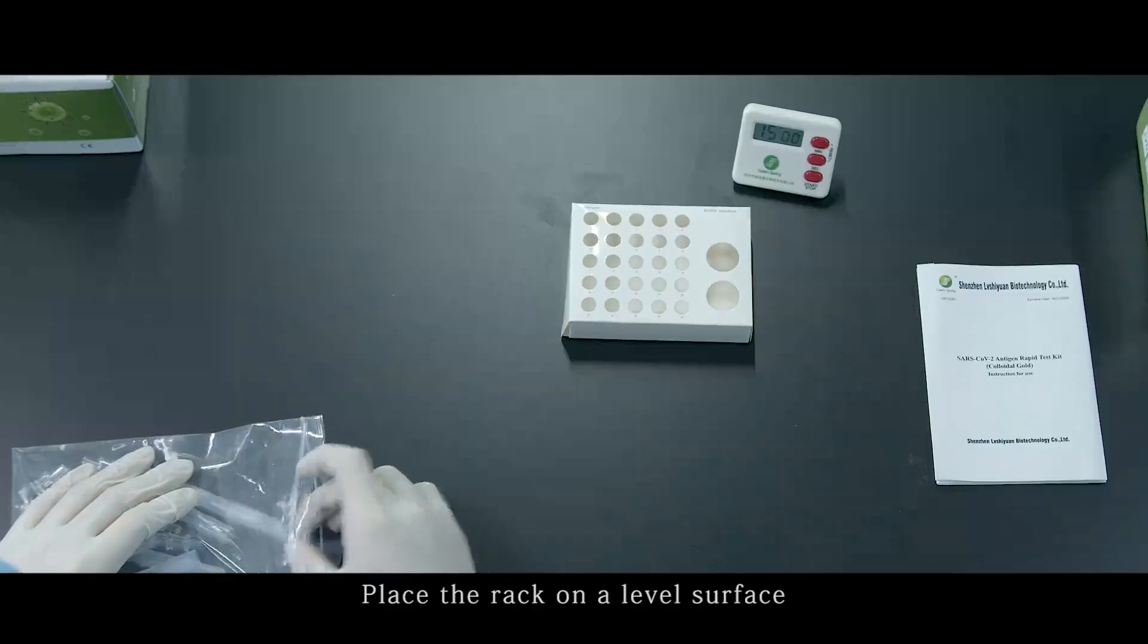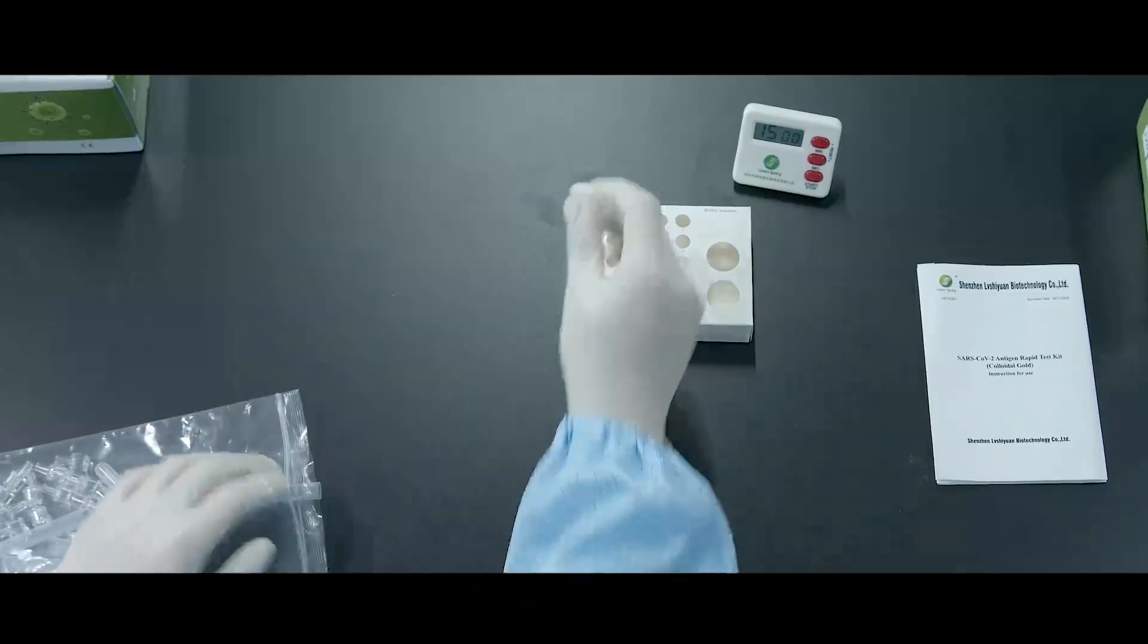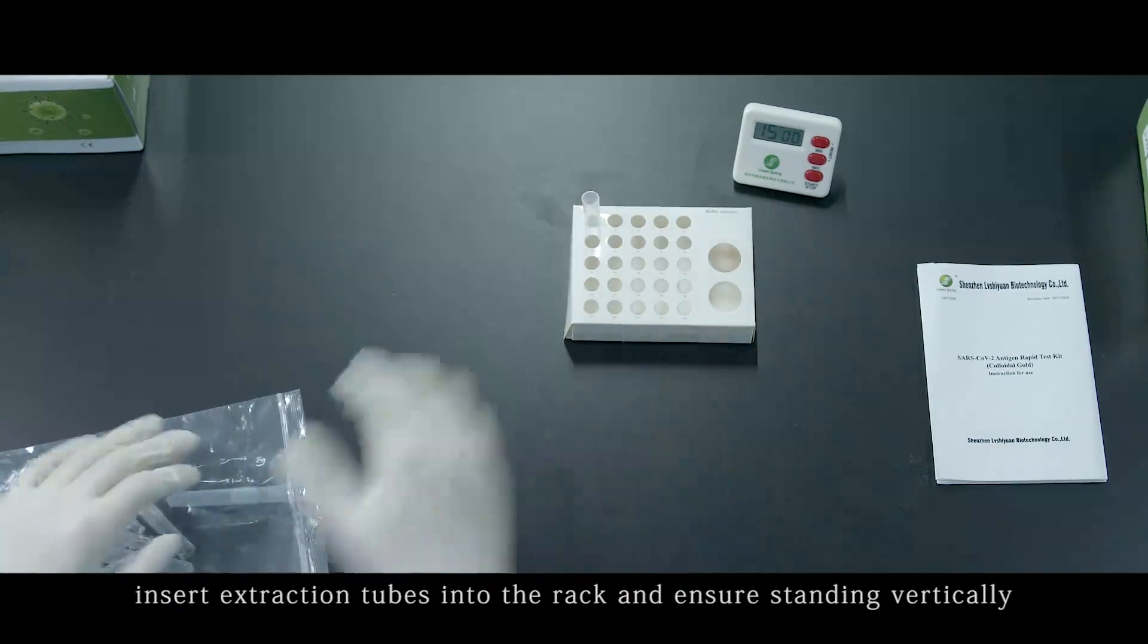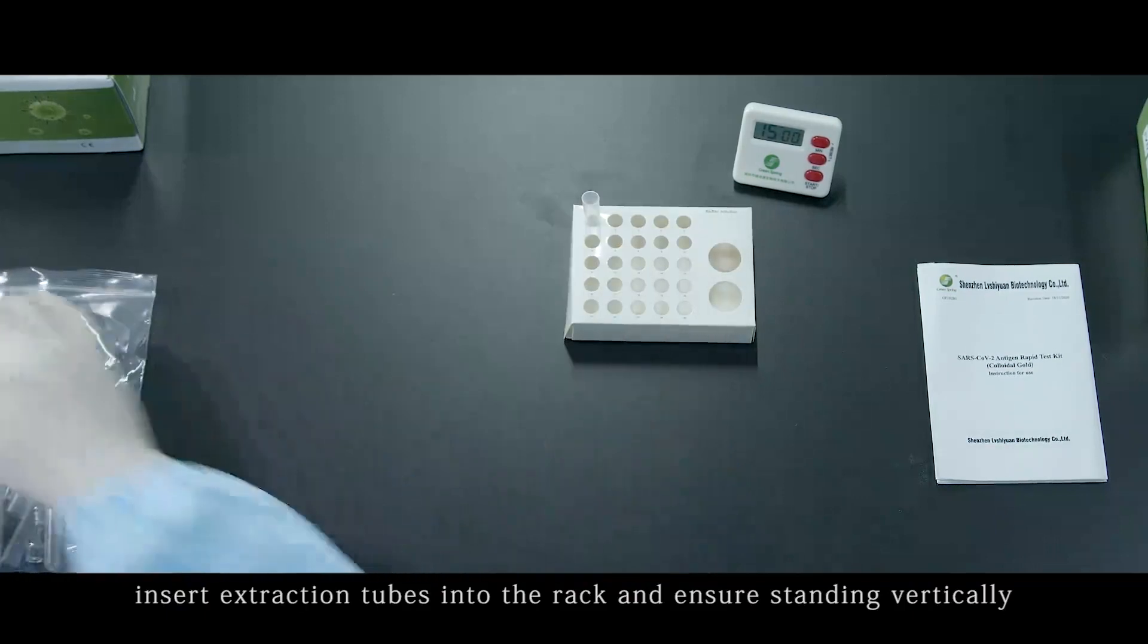Place the rack on a level surface. Insert extraction tubes into the rack and ensure standing vertically.